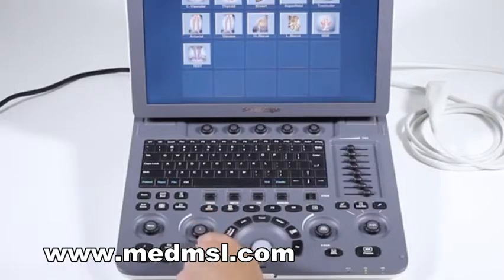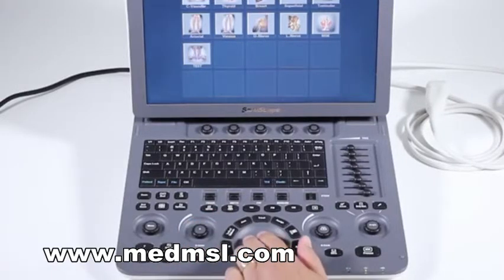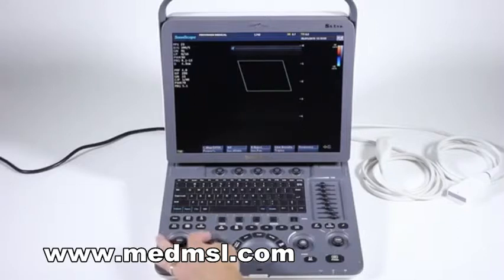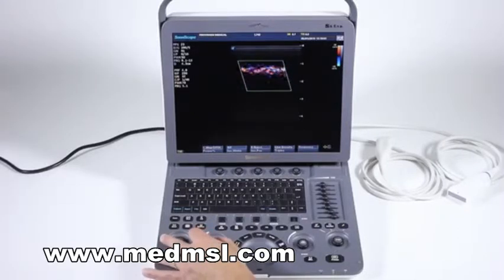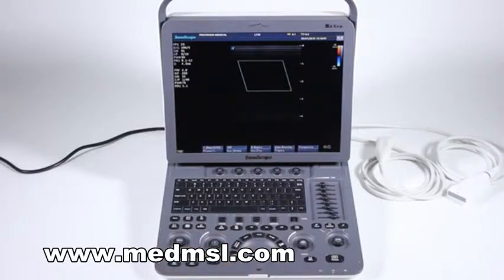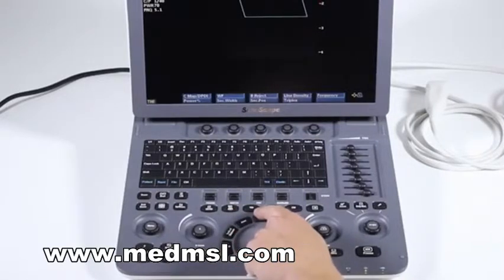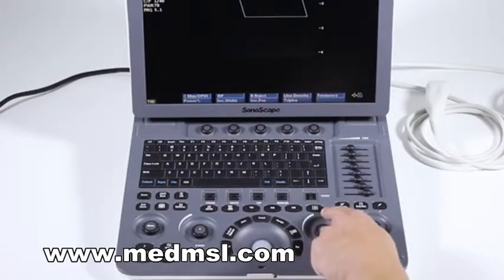Coming down here, we have our color Doppler control. When we go into our exam, we press down the middle button to activate color Doppler, and this button also doubles as your gain control — when you twist it, it turns your Doppler gain up and down. That Doppler gain also works for pulse wave and CW Doppler. 3D is here if enabled. DPI is for power Doppler imaging, TDI for tissue Doppler, pulse wave, CW Doppler, and M-mode.